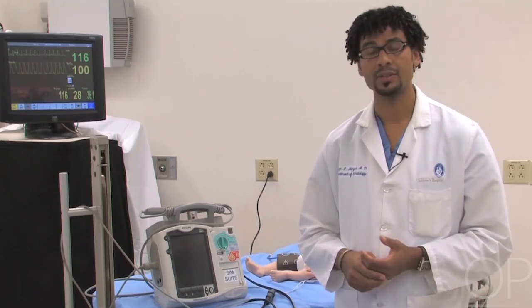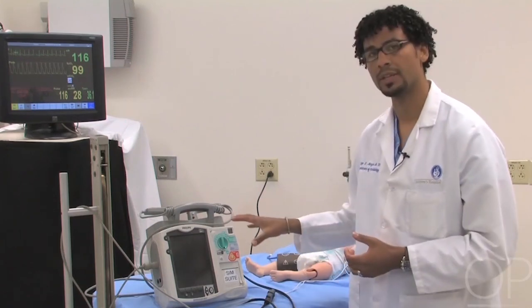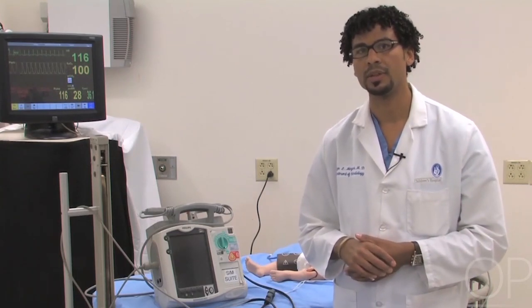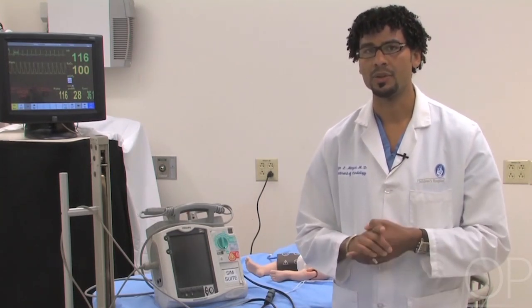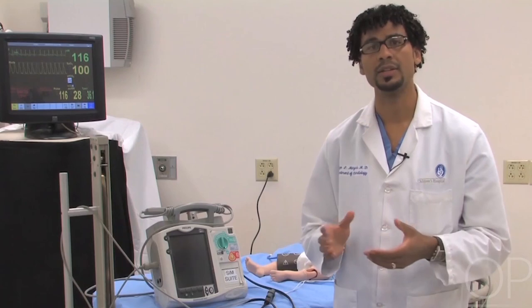Transcutaneous pacing is used relatively uncommonly in pediatrics, so you might have to adapt some of the methods and equipment to what you have in your environment. Transcutaneous pacing is not the first clinical method that should be attempted in the stabilization of patients with bradycardia. We'll discuss the physiology, how it's done, the indications, available equipment, and finally simulate transcutaneously pacing a patient.